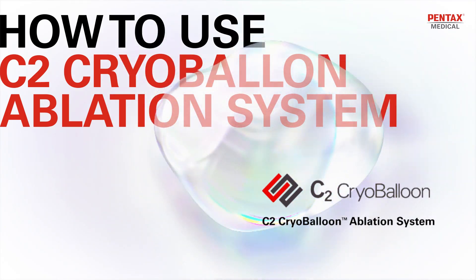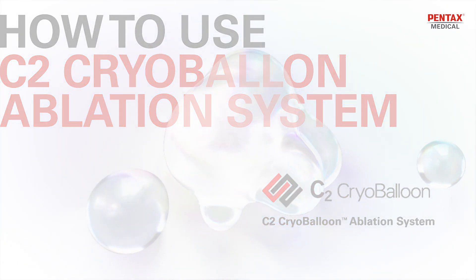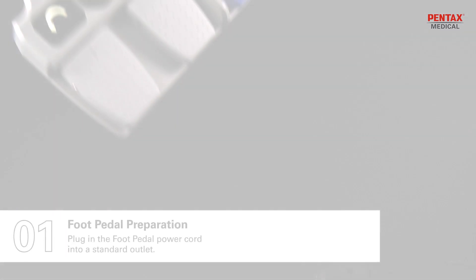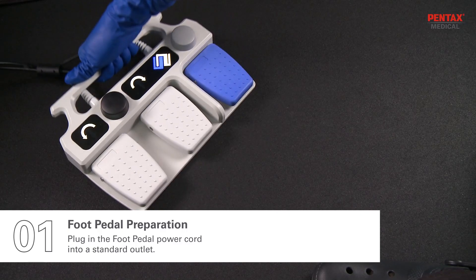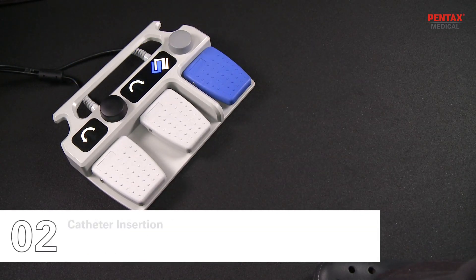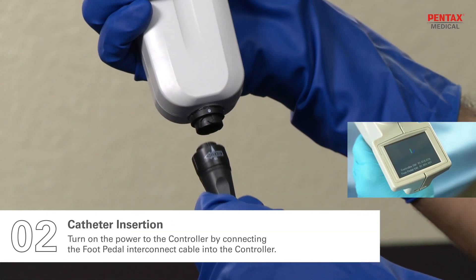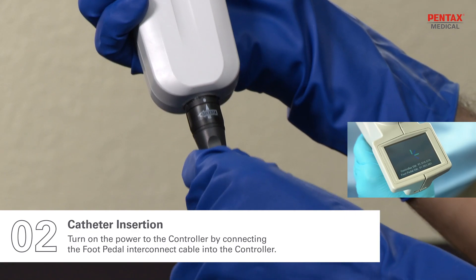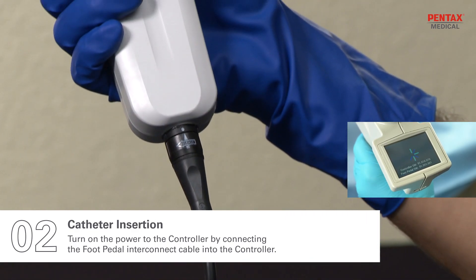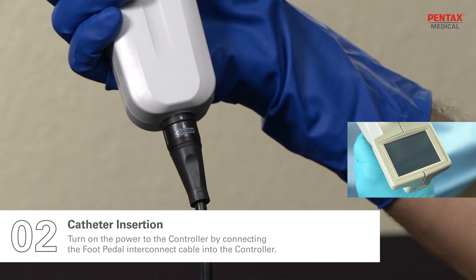C2 cryoballoon ablation system in-service video. Plug in the foot pedal power cord into a standard outlet. Turn on the power to the controller by connecting the foot pedal interconnect cable into the controller.